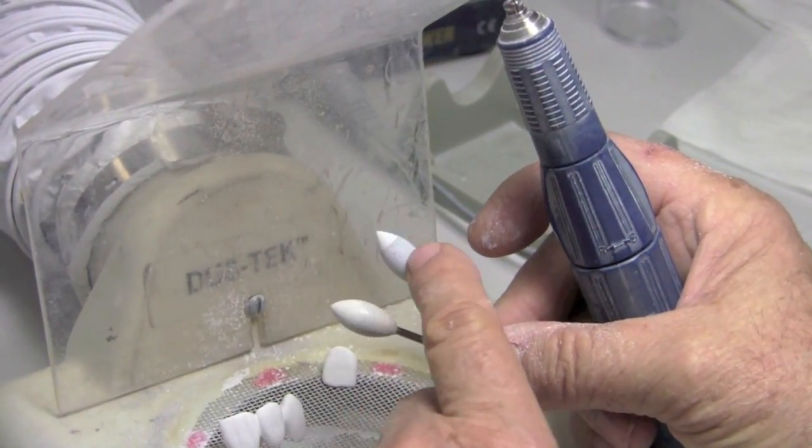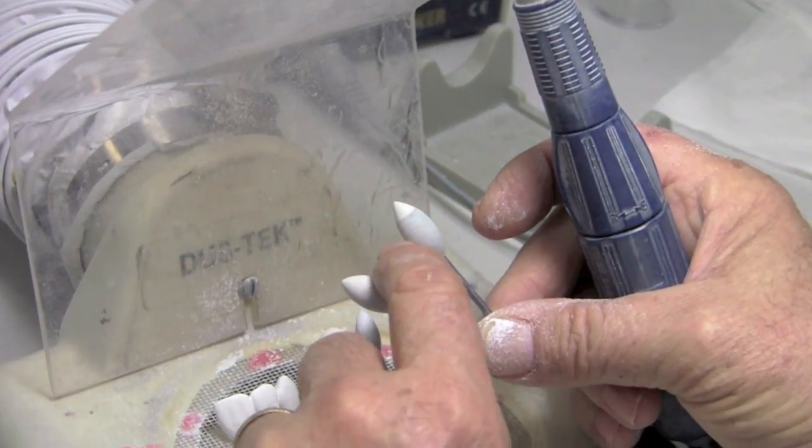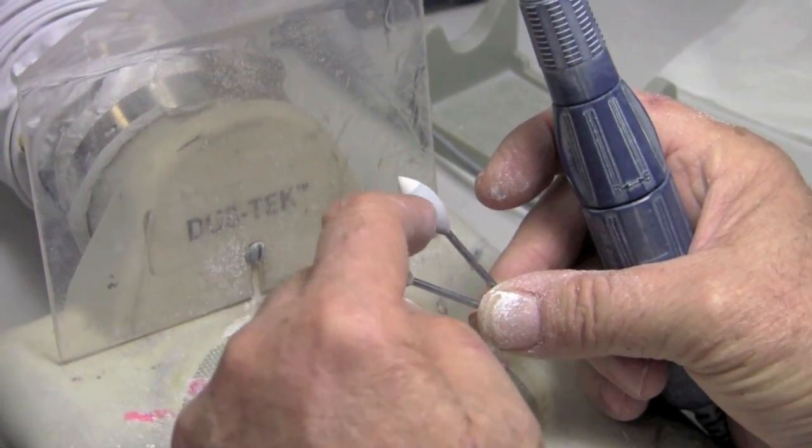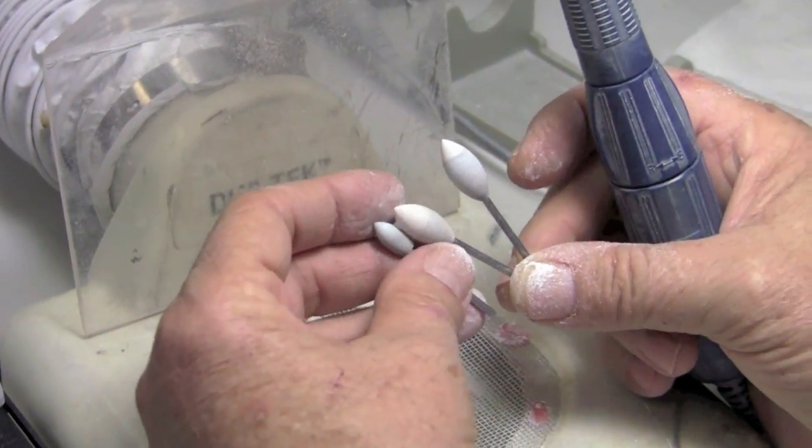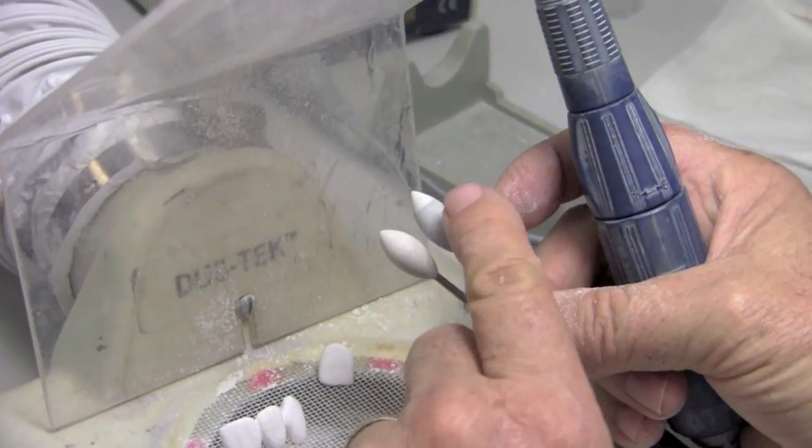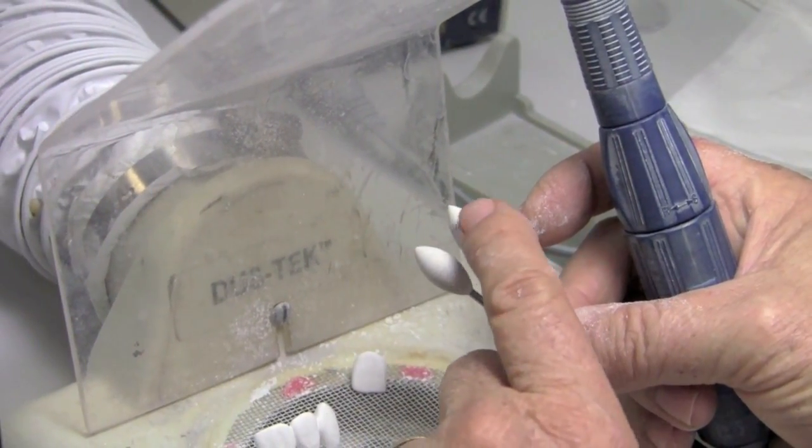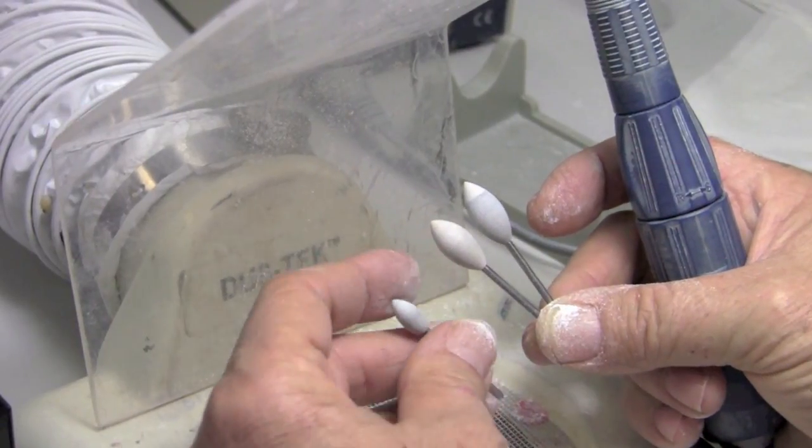They have this white. It's almost like a silicone material that is the fine material, quite smooth. I like this a lot on facials. And then the combination of the gray and the white, which is obvious. It's for a little more aggressive removal of zirconia on the side with a nice fine, smooth tip for refining the surfaces and smooth them up. Your choice, what you like.